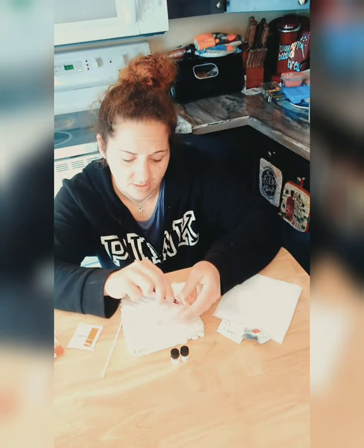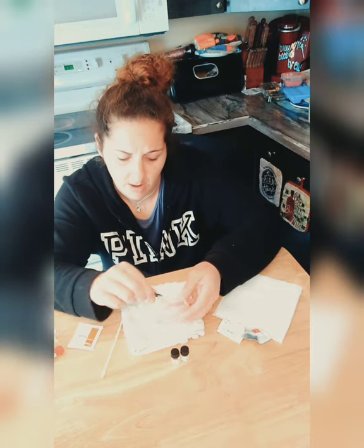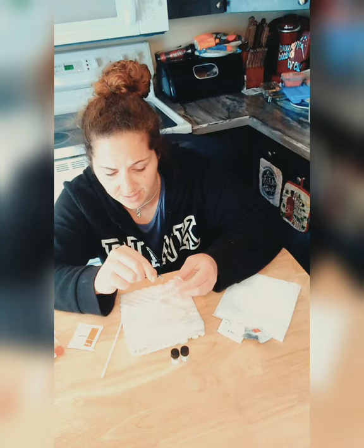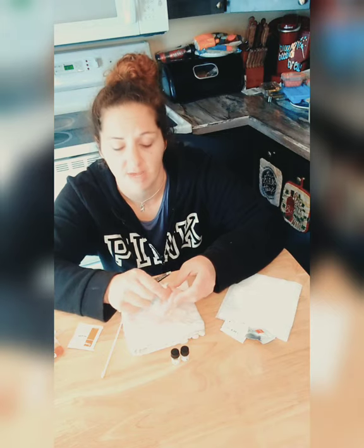Just remember, guys — when you're done ripping this out and before you start your new Denture Fit reline, please for the love of God wash your denture. Scrub the crap out of it and clean it well, because that's the only way any reline is going to grip properly. It needs to be clean, so please make sure you're cleaning your denture.